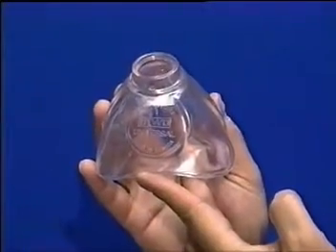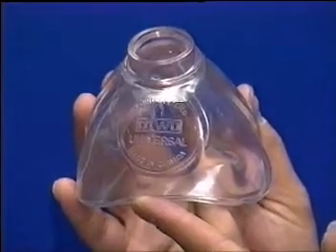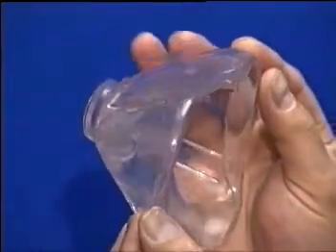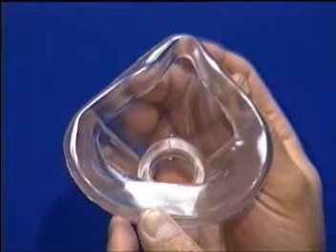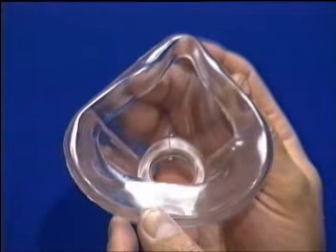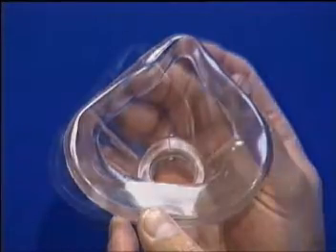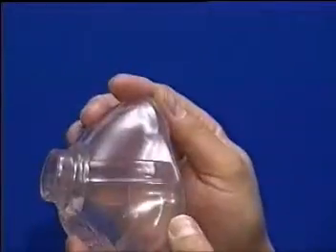The universal resuscitation mask has been designed to provide one size of mask that will fit all patients from adults through to infants. The mask conforms to the natural contours of the face to obtain an effective mask-to-face seal due to the inner ever-seal edge design. The mask is virtually indestructible and is not adversely affected by the extremes of temperature.